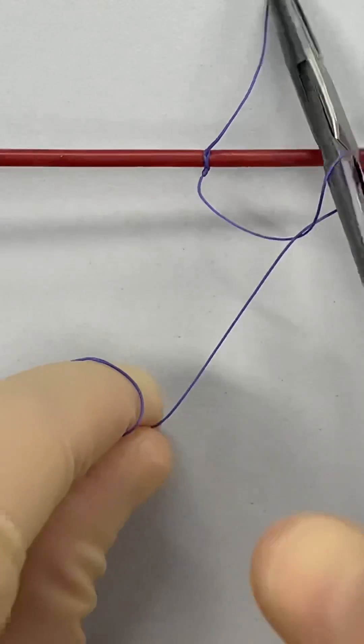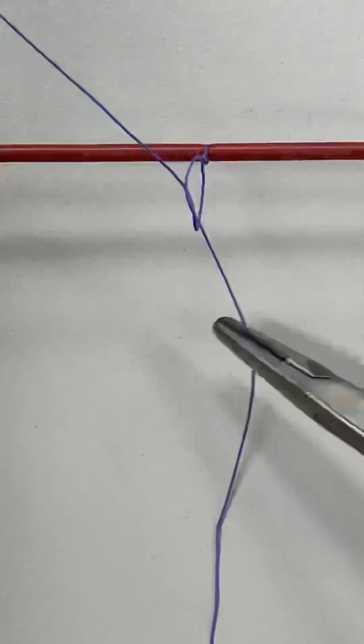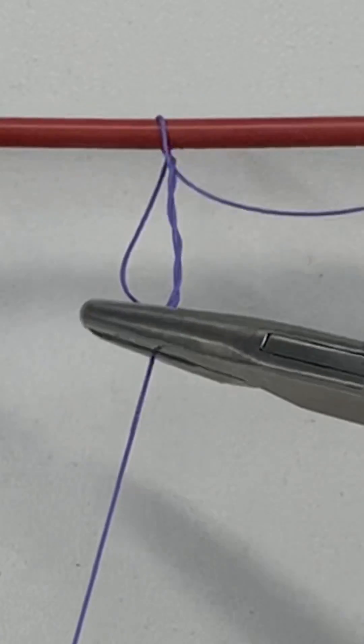I challenge you to invent variations of the sliding knot to test their different properties and who knows, your name may go down in knot history.